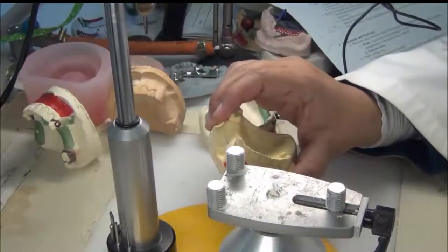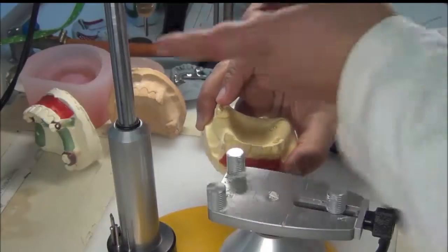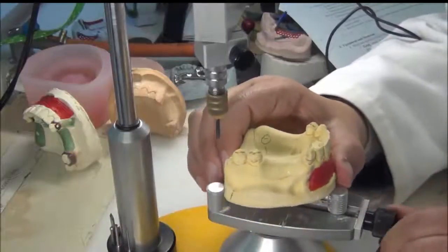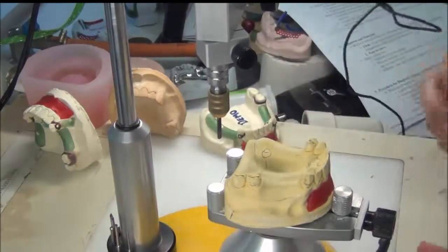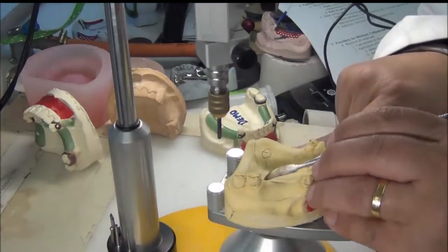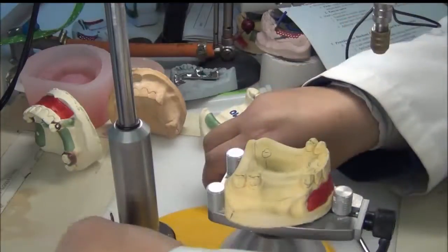The second block out is called parallel block out, which requires a paralleling device — our surveyor. We need to put the cast back in the same orientation we used during the study cast. To confirm correct orientation, we transfer the tripod points from the primary cast — where we drew the design — to the secondary cast. Using the analyzing rod, we make sure the tripod points are the same.